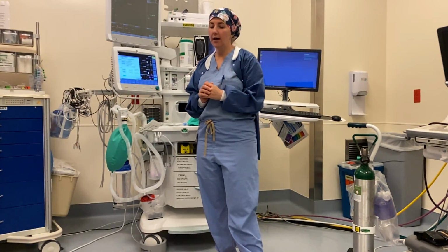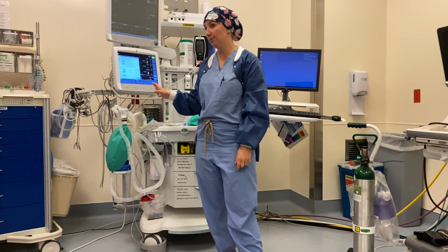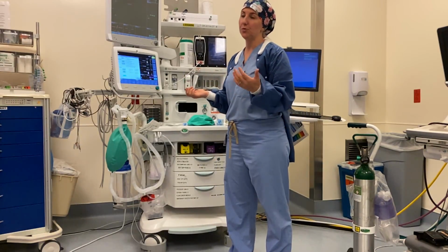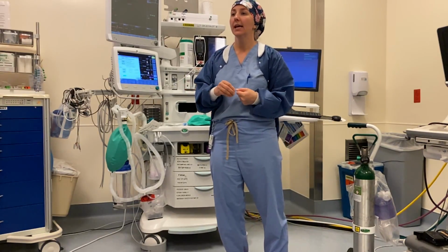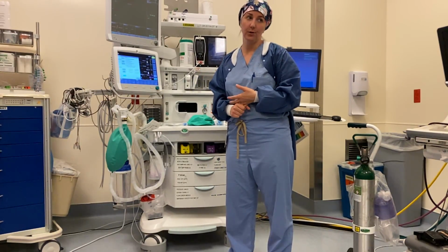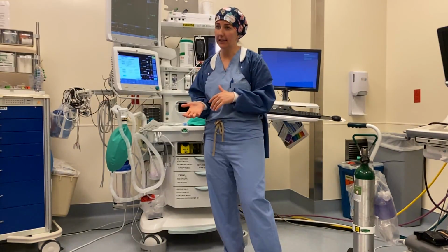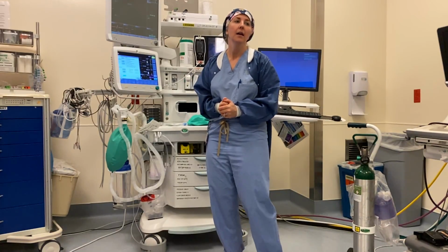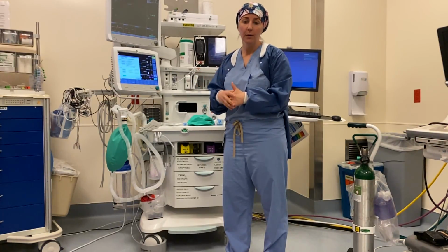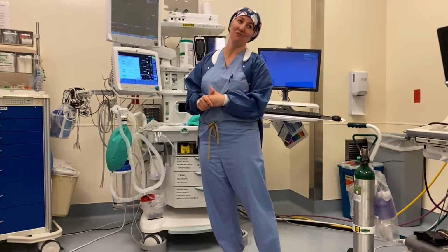Okay, so you're here today because I'm going to go through the anesthesia machine ventilator with you guys in the event that we reach a scenario in which we need to be taking care of patients in operating rooms because they require a ventilator and the ICUs and the PACU have been saturated. Whether those patients will be COVID patients or regular ICU patients, I have no idea. But either way, I'm showing you the ventilator today so that if that scenario presents itself, the first time you see the machine won't be when the patient is connected to it, okay?